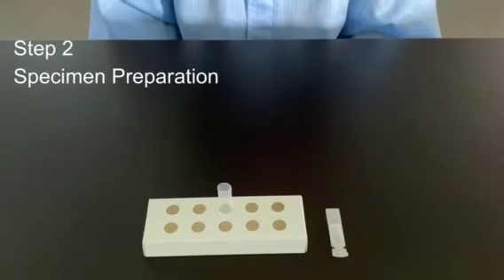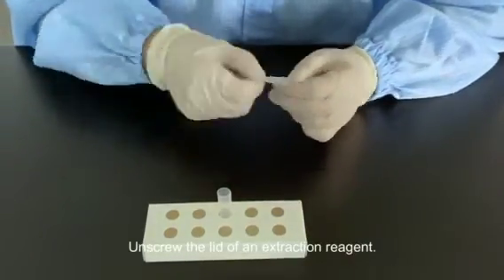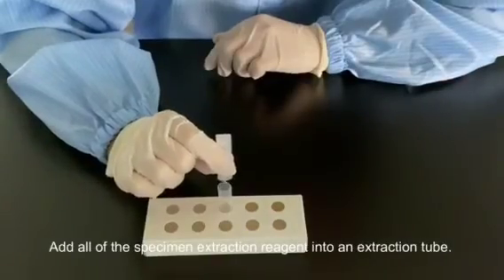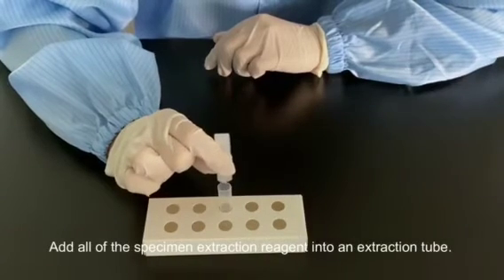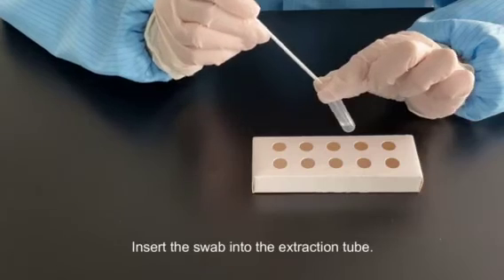Step 2. Specimen preparation. Unscrew the lid of the extraction reagent. Add all of the specimen extraction reagent into an extraction tube. Insert the swab sample into the extraction tube.